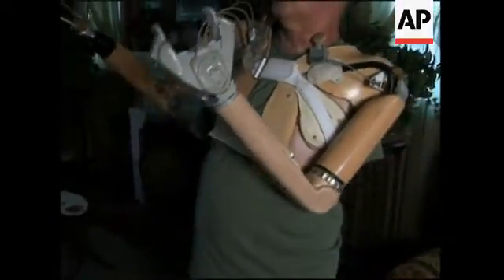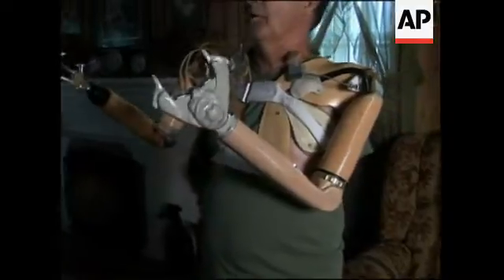All I'm doing is just opening and closing my hand. Elbow down, elbow up. Close my hand, open my hand. I can switch to wrist and I can control the rotation of that wrist just by opening and closing my hand.